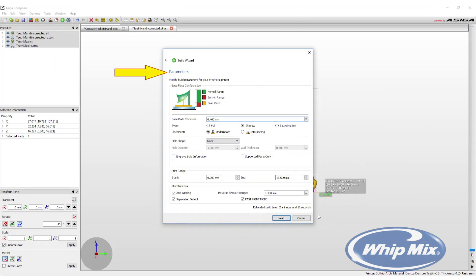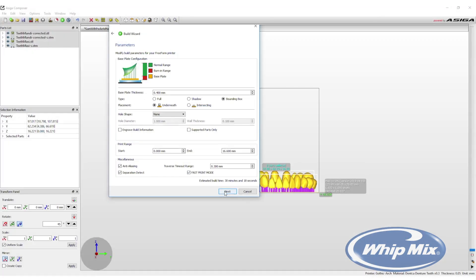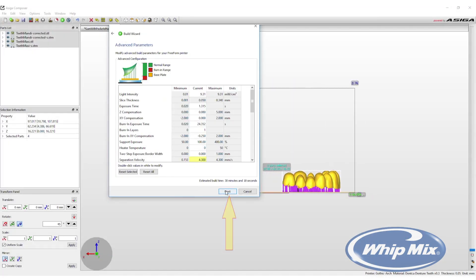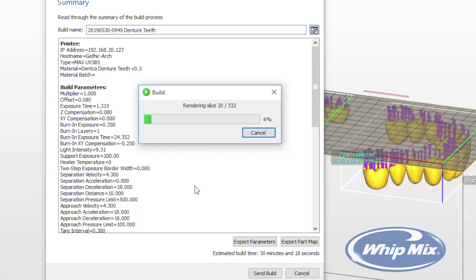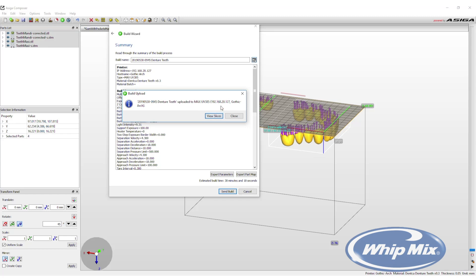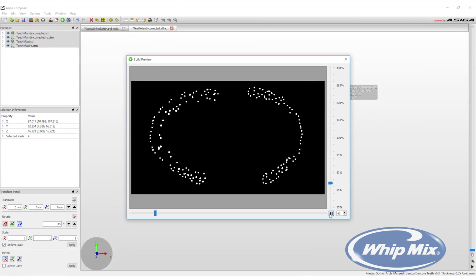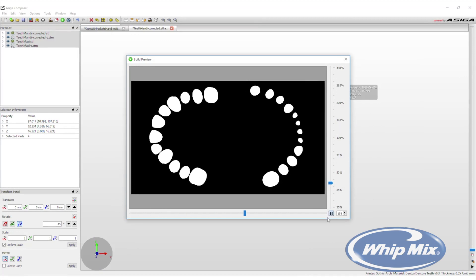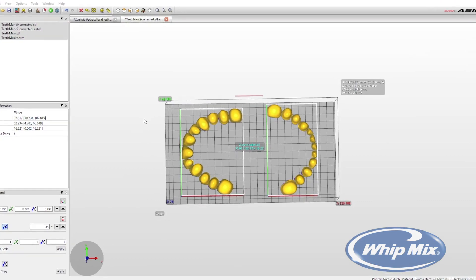If satisfied with the placement, select the Build Wizard. Select Next, and in the parameters window, change the type from Shadow to Bounding Box. Then select Next. Select Next again, and in the summary the build can be named. Click Send Build and the design will be sent to the printer. When the build is submitted, the slices or layers can now be viewed. In the build preview, the process arrow along the bottom can be moved to see how exactly the layers will be built. The slide on the right allows you to zoom in and out of the print preview. The printer will now complete the print process.